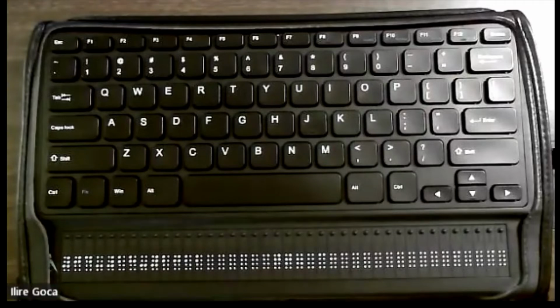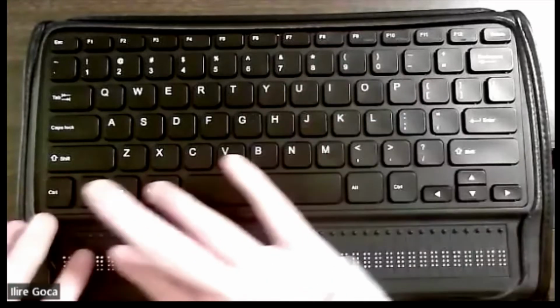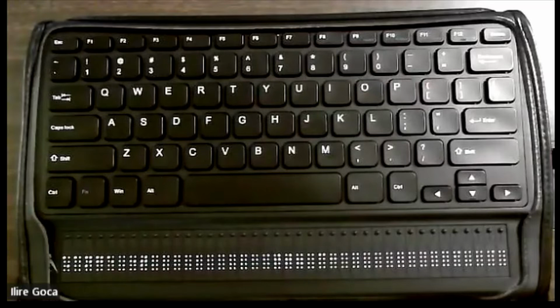If you would like to change the date and time, press Ctrl with M. You must be in the date and time application in order for this command to work. So I'm going to hit Ctrl with M. Once you press Ctrl with M, a few options will be displayed. The first option, Change Time, allows you to enter numeric values for hours and minutes. It also allows you to select AM or PM.